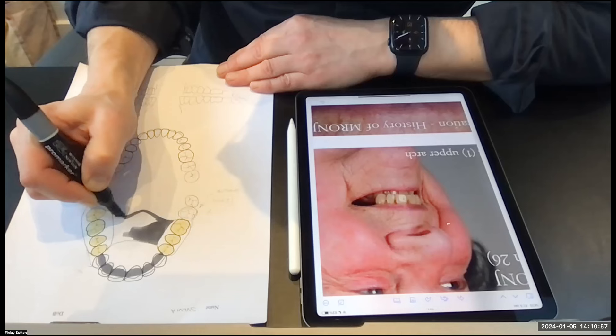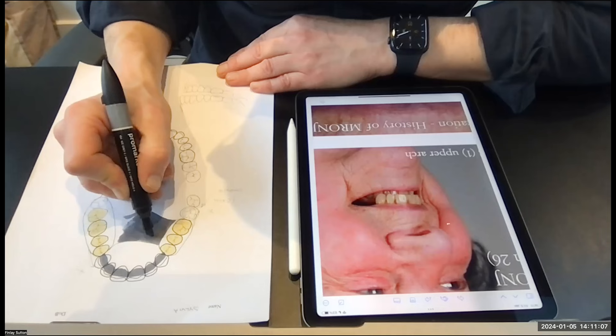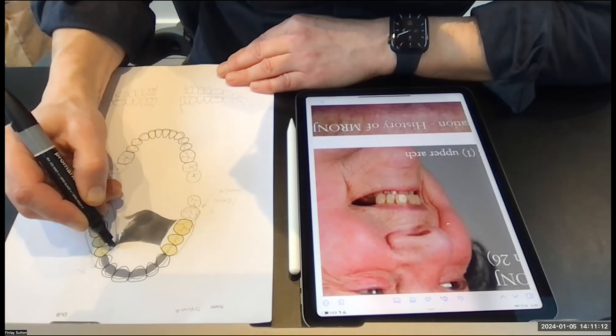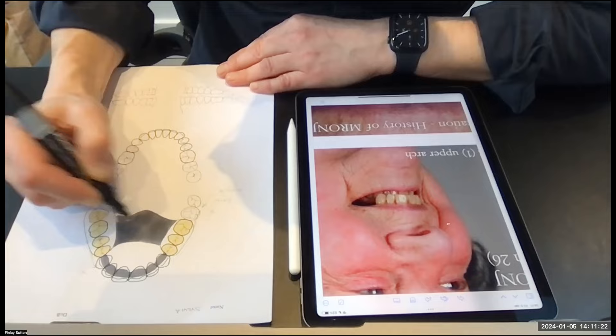I find with having the palate filled like this — there are other forms of palate, you can have the cutout section, the donut-shaped palate or the toilet seat design, which I don't like at all — I much prefer to have it filled. Then we can utilise this palatal support because that's not going to resolve and it's not going anywhere.